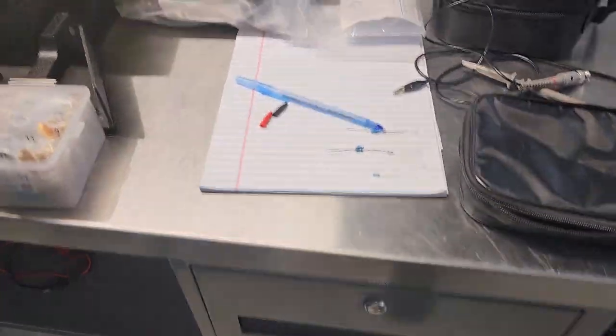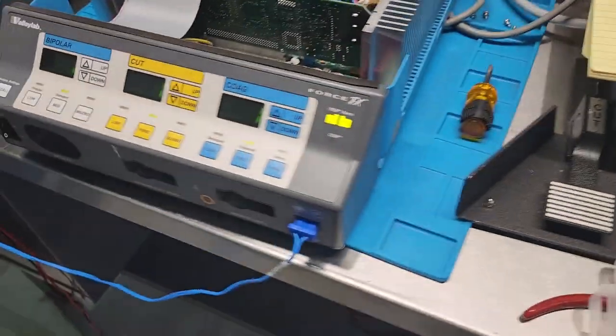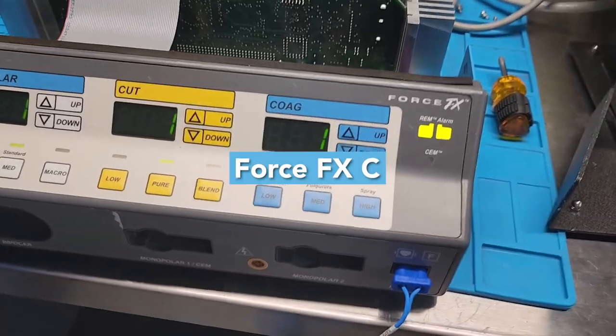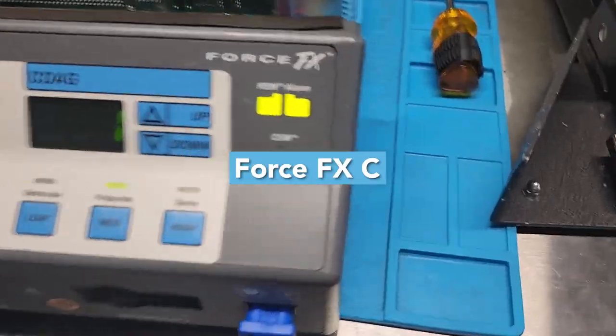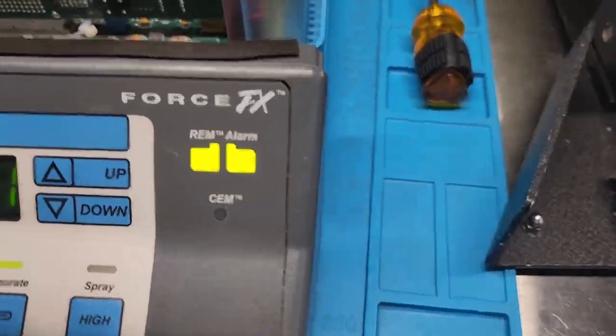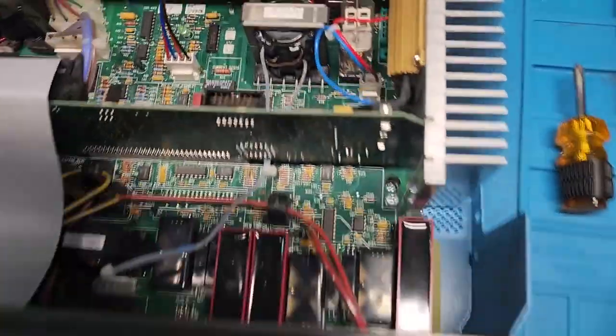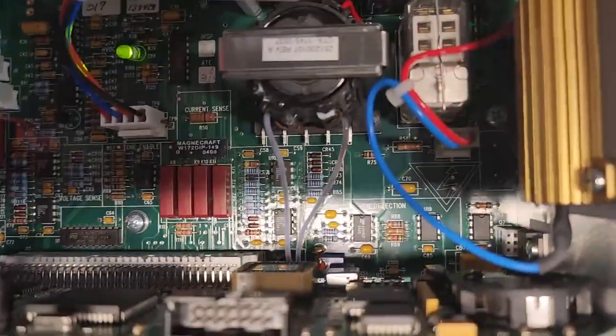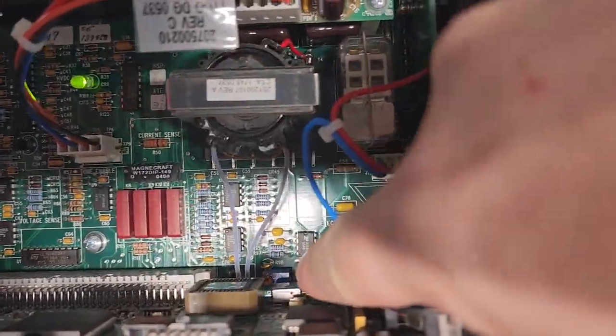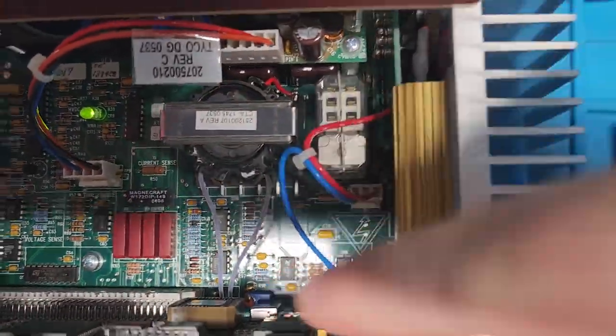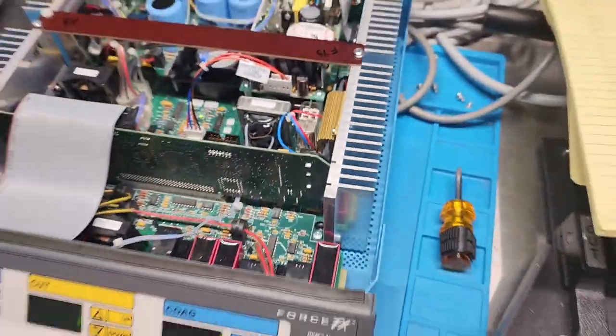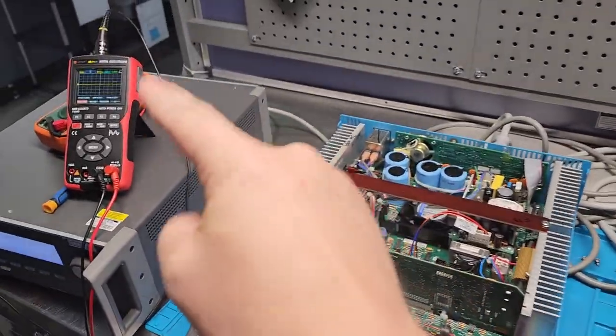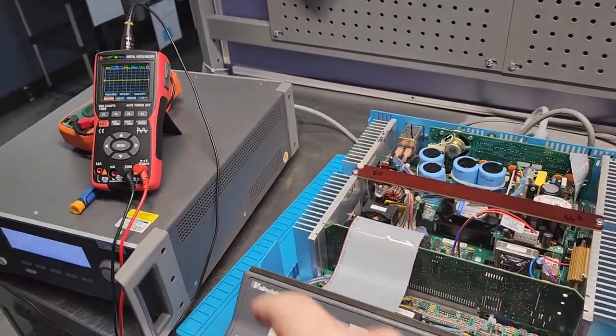Okay guys, let's go ahead and take a look. So this here is a Valley Lab Force FX Charlie, even though it doesn't say right here on the emblem. What we got to do is down here on the inside there is a tiny little potentiometer right there, which has to be adjusted as the first stage before you can do your ohms calibration.